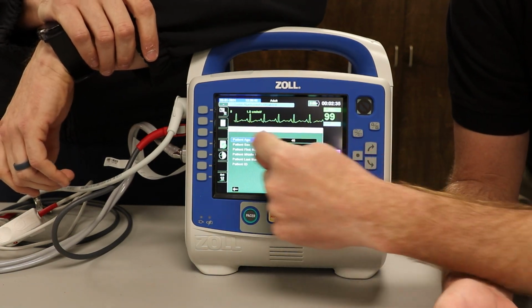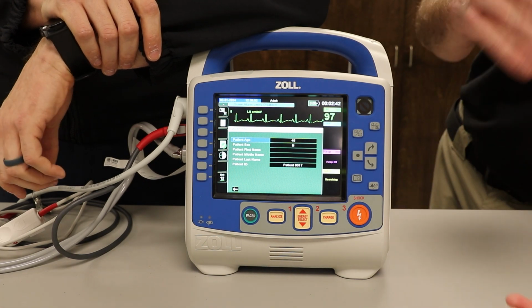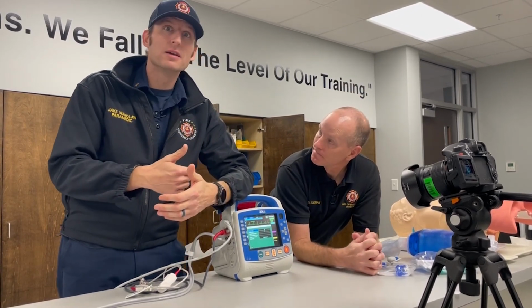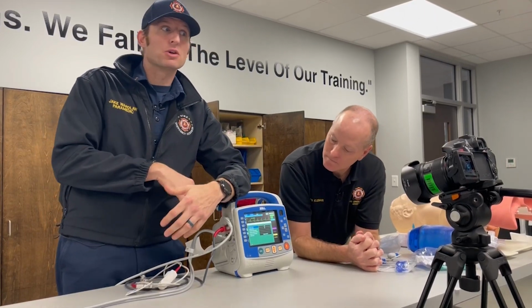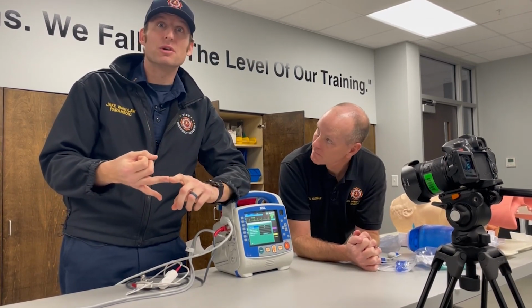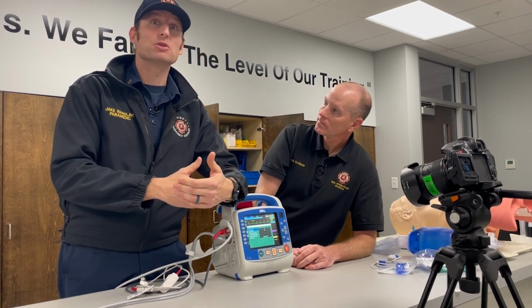The second one, and what it did is actually brought up, and it actually will change your parameters of what your monitor is looking for to say, is this 45-year-old male, is this a criteria to make a STEMI or not a STEMI? Correct. So that goes back into, there is minimum requirements, just like David said, certain things that the hospital needs when we transmit, let alone what the monitor will need. So talking about the monitor specifically, it will diagnose based off criteria that you place into the system. Correct. So that's age and gender. It is going to give you a potential diagnosis, whether it's STEMI, whether it's normal or not. It's going to give you some sort of feedback based off the information you put in.